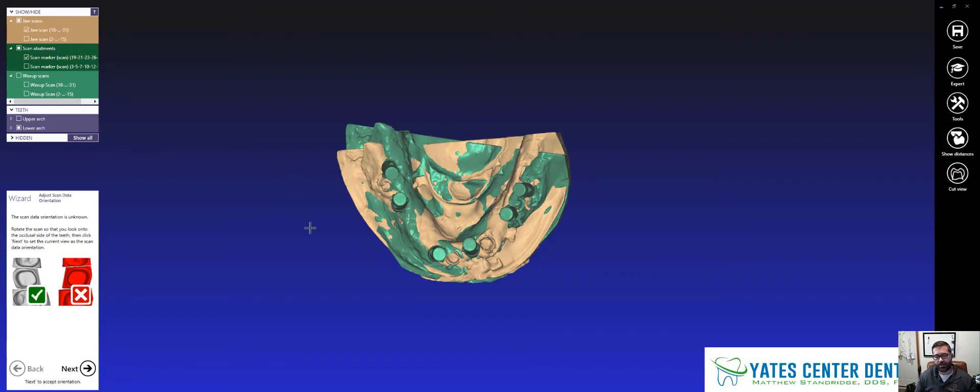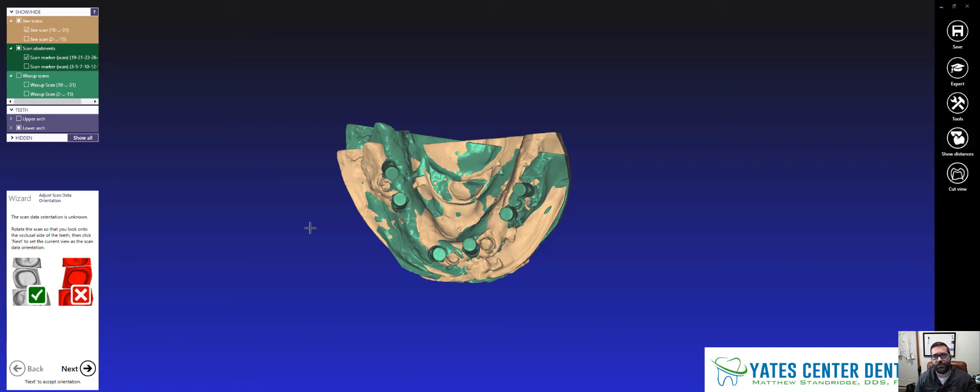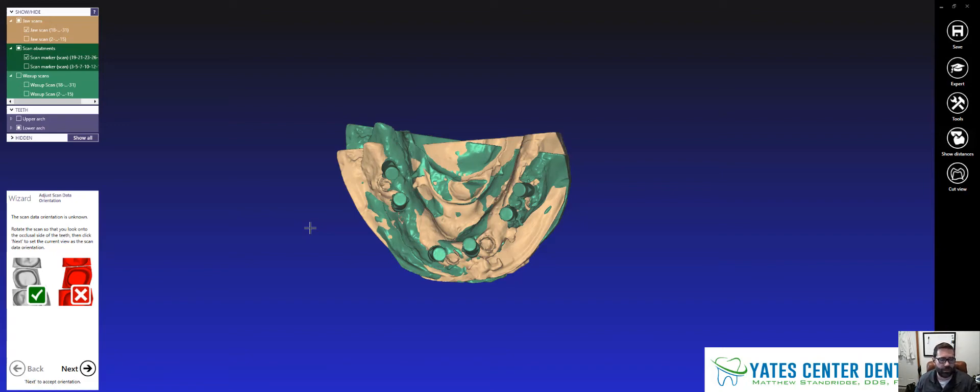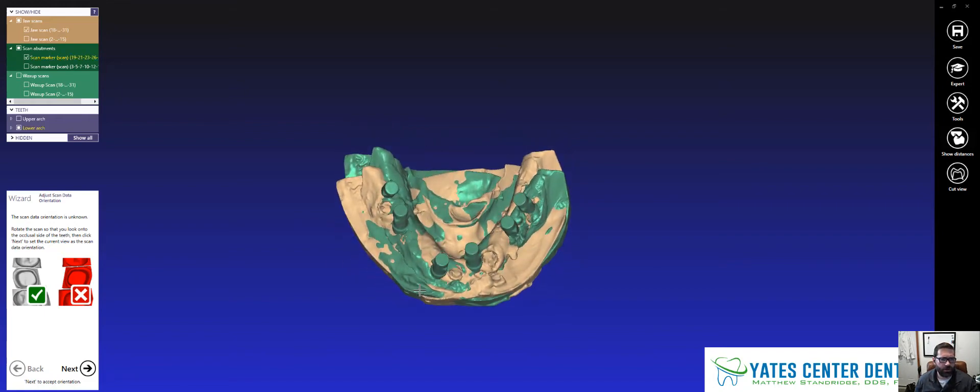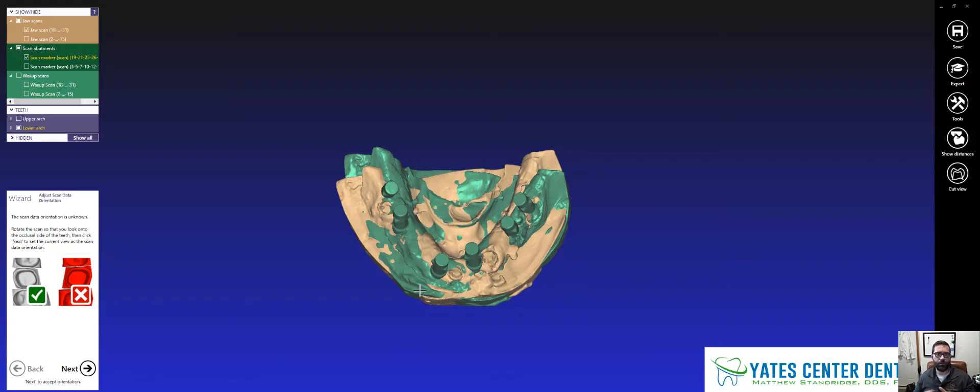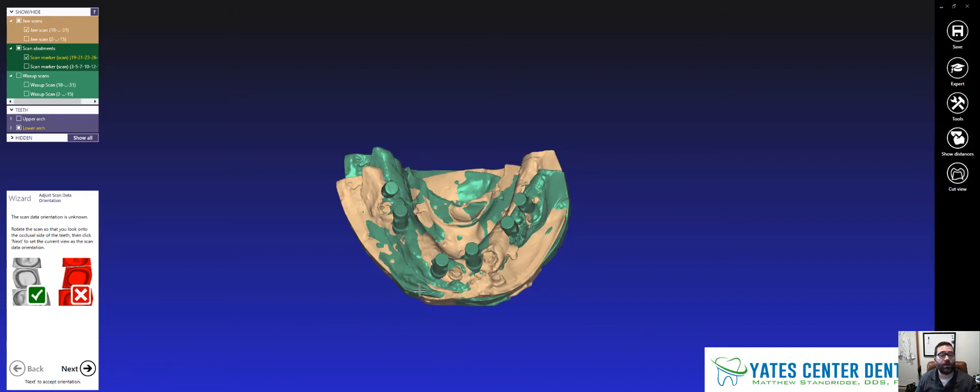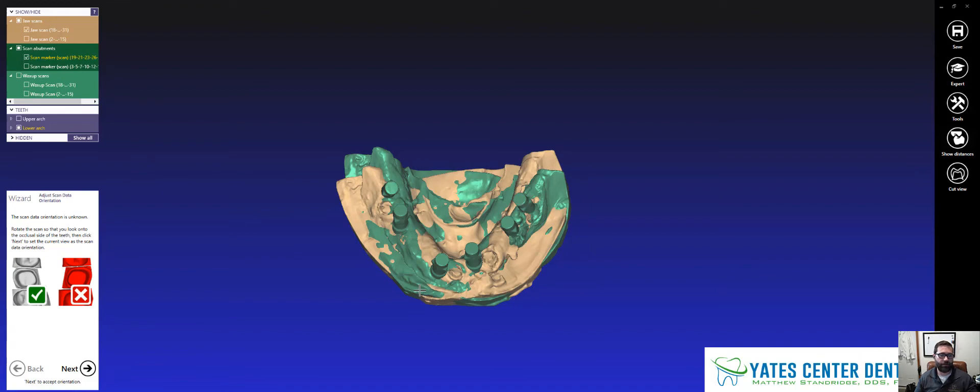I took conventional impressions of this. I did an in-the-mouth verification jig, impressions, and all that stuff, and I scanned it on a desktop scanner. I used the Blue Sky Bio DS scanner. And so when you do that using a desktop scanner, it loses its relations between your gingiva scan and your scan body scans and all that stuff. And so I wanted to show a quick way to re-relate everything.